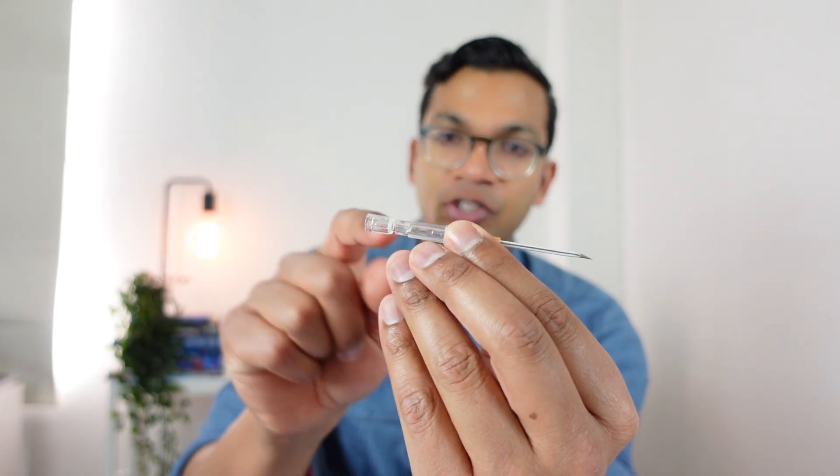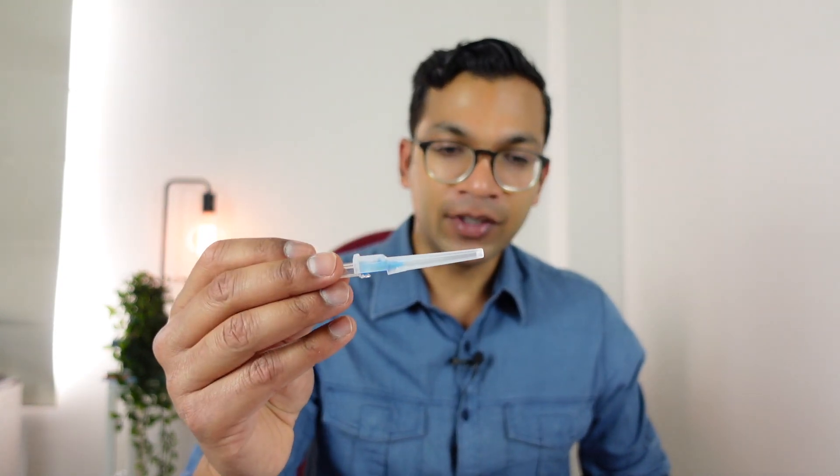Usually flashback is instant, so everything we're talking about - putting saline in the chamber - doesn't usually matter, because there's a vein with high enough venous pressure and a needle with a large enough metal tube and chamber. Even a 22 gauge in a high pressure vein is not a problem at all. But if it's a very low pressure, small, spindly, or fragile vein, that's when you're going to have problems and your flashback will be incredibly slow.